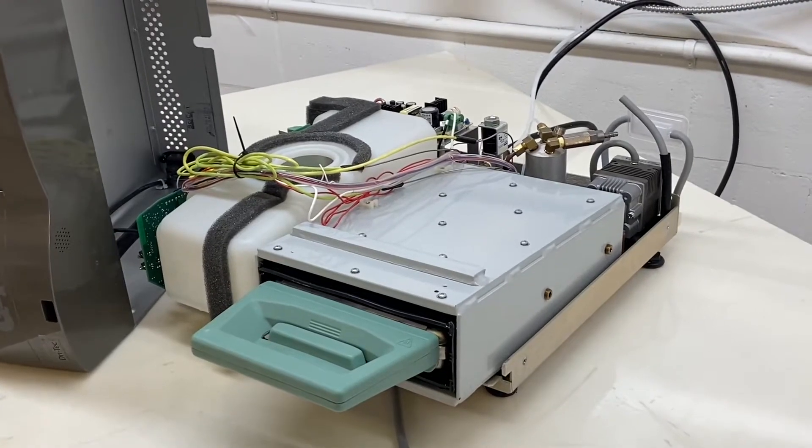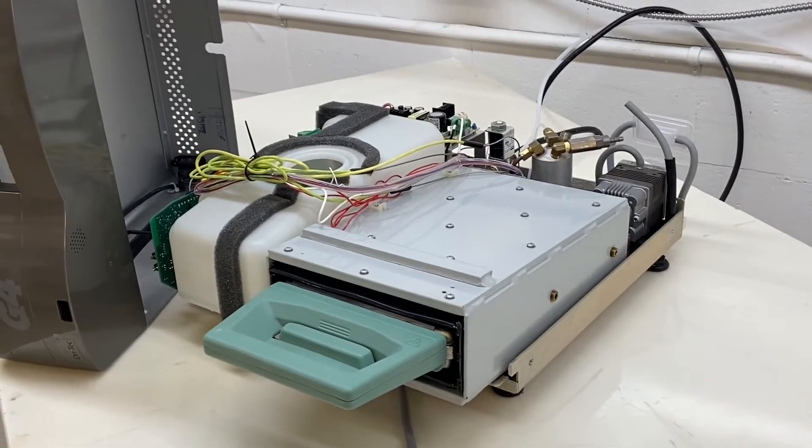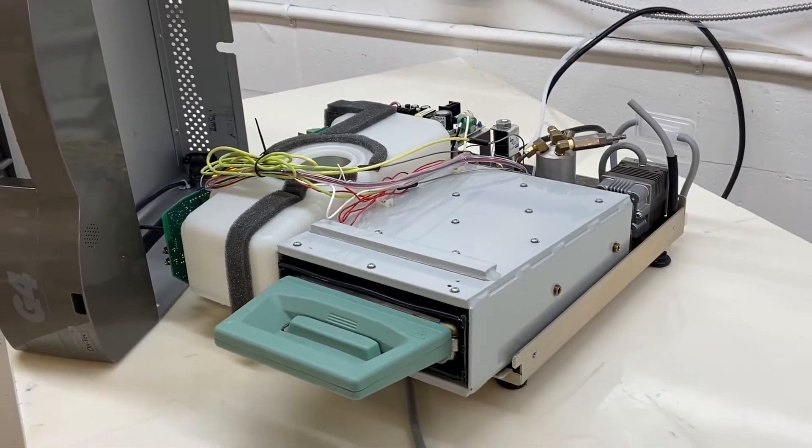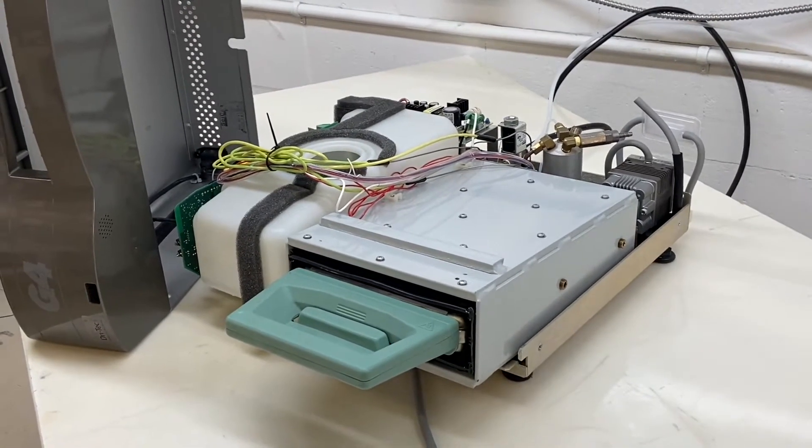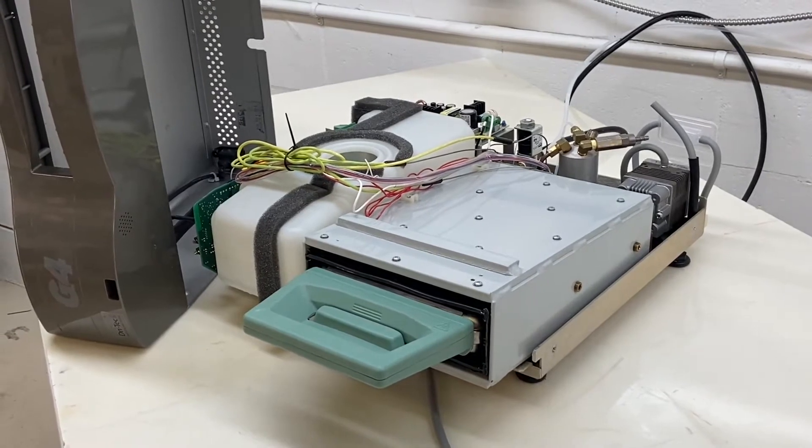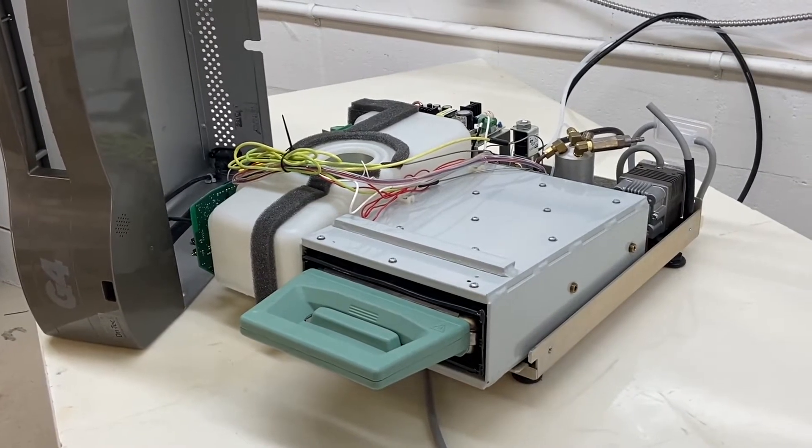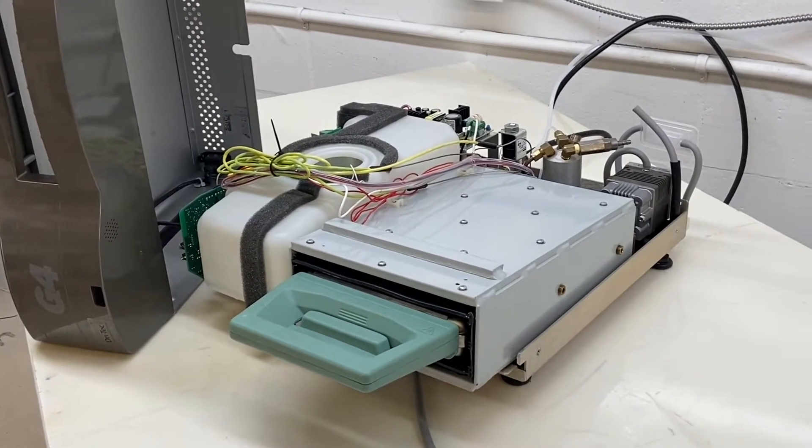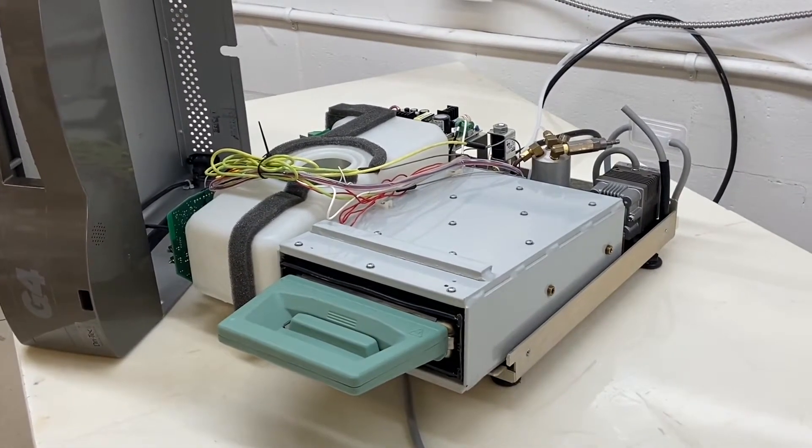Andrew here, Sterilizer Autoclave Solutions. We're getting crazy with cycle faults. G4 cycle faults, specifically G4 cycle fault number four.